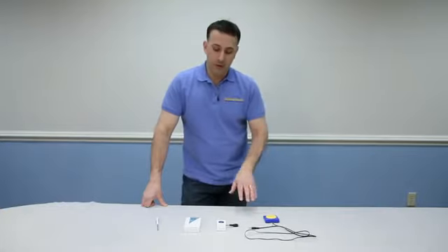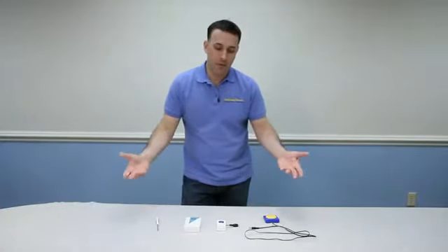There are other products on the market for that. This is really just an assistant to help people. So there you have it - item 1499, the Attendant Call Chime. You can purchase this item through our catalog or our phone sales at 1-800-832-8697, and on our website at enablingdevices.com.